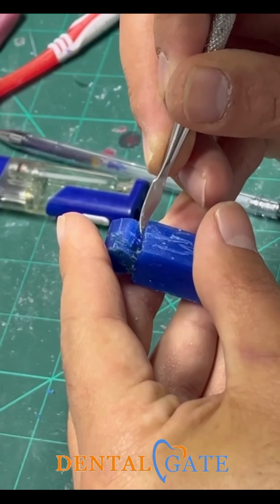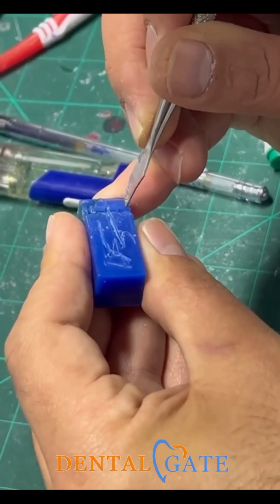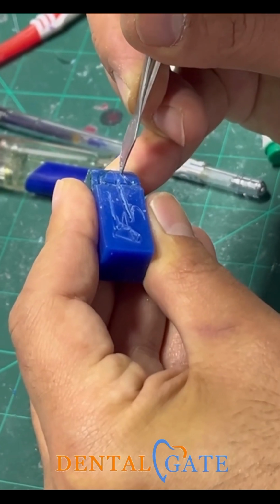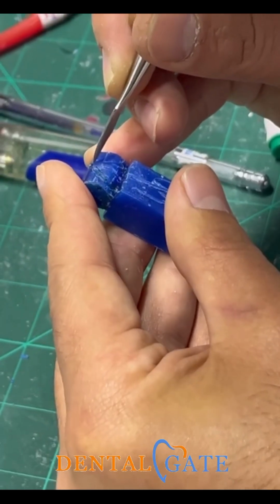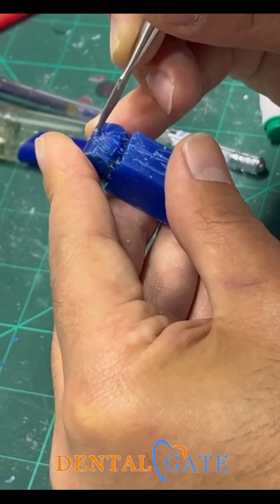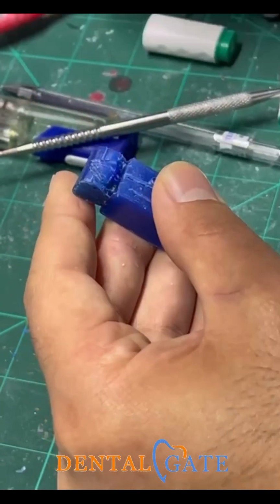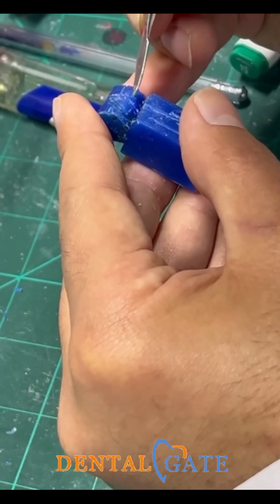So alter your shape to make a concave, but don't make it severe. This is your concavity. So you can see I need just this point.